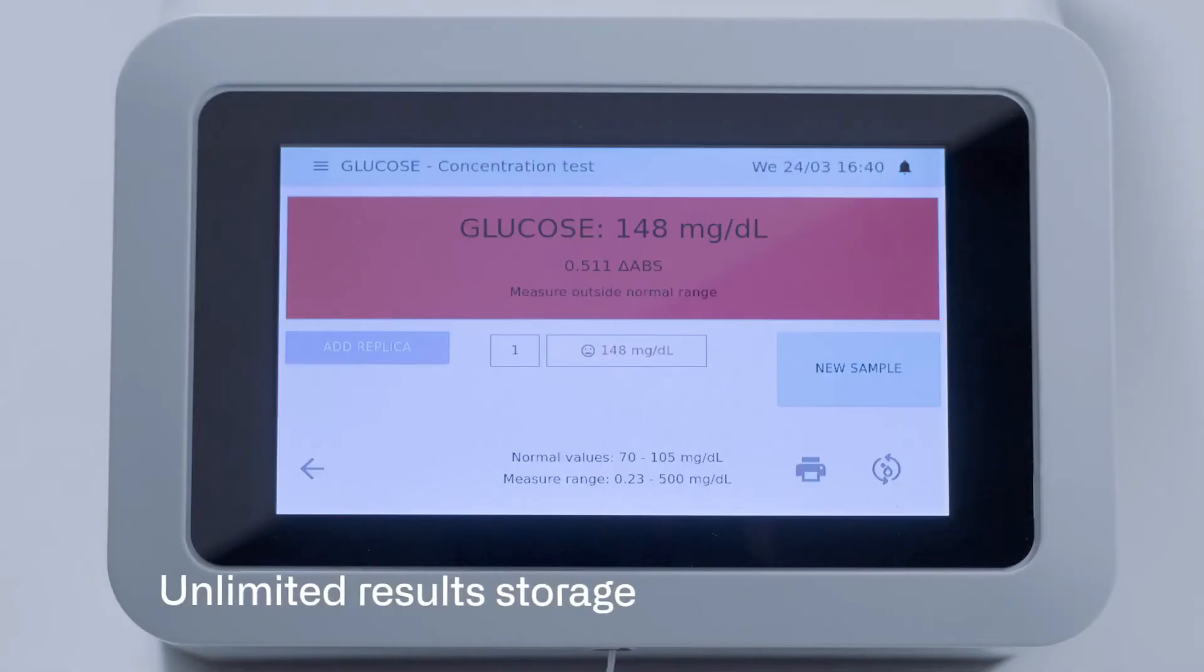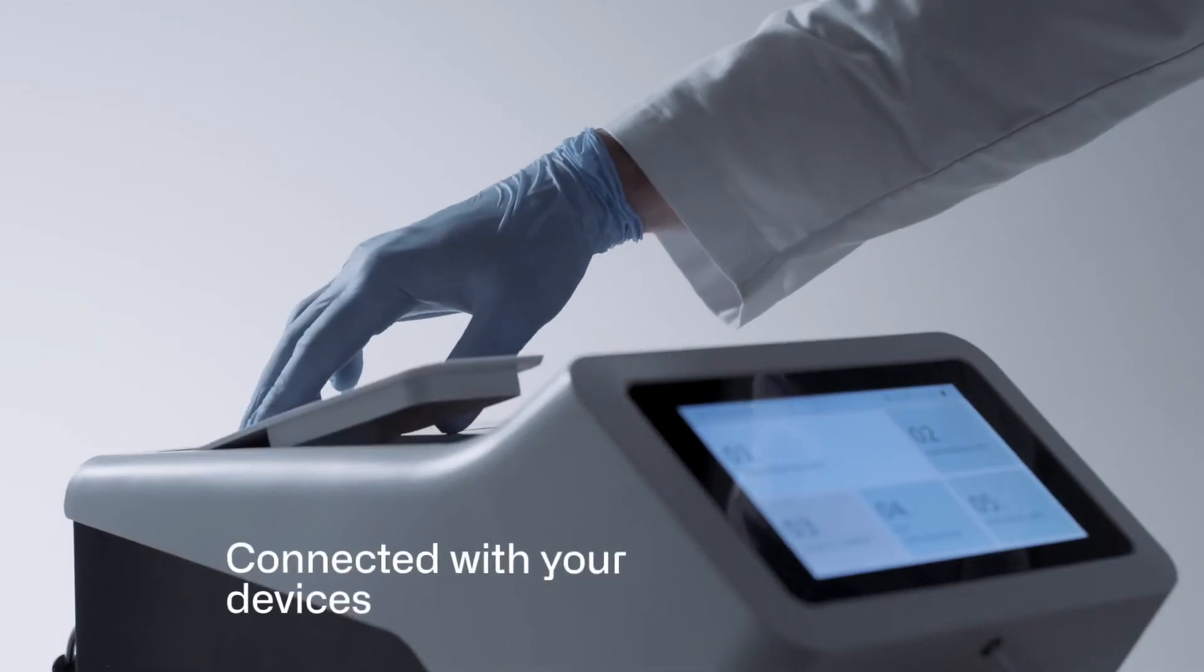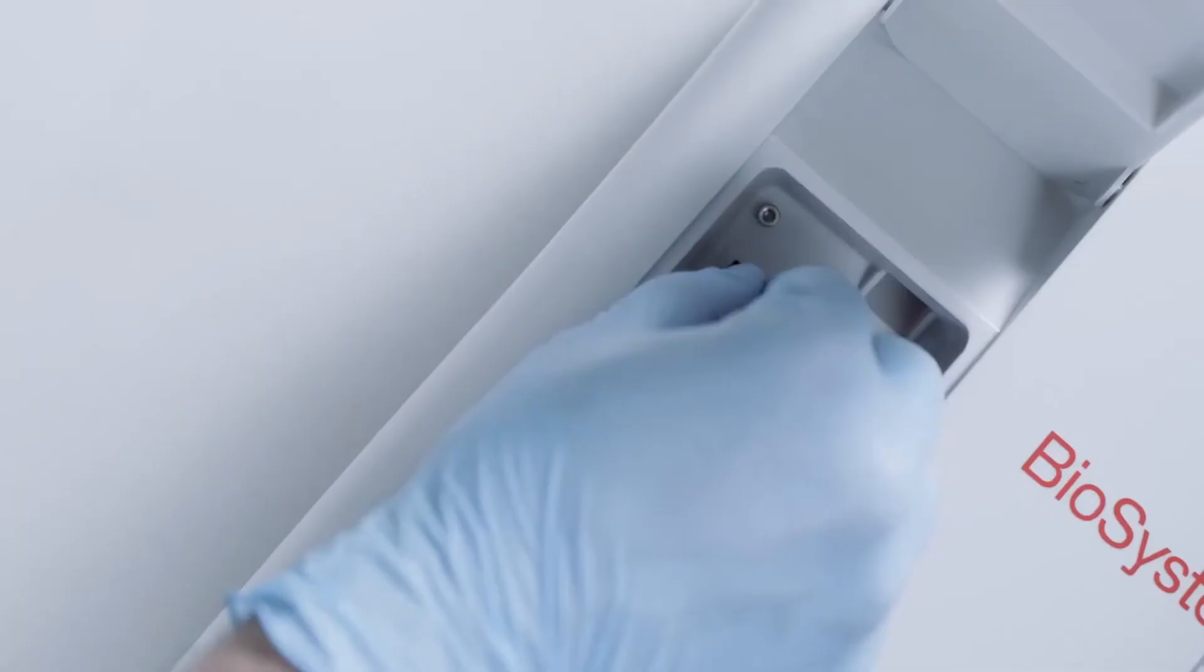This is due to it being able to handle a lower number of samples at a time as compared to the fully-automatic one.